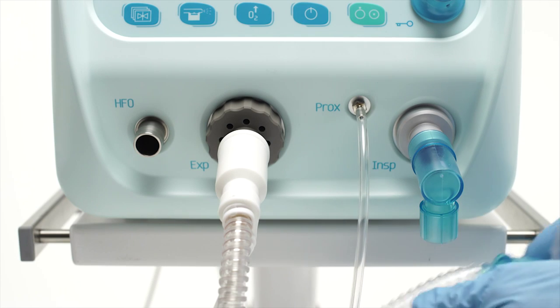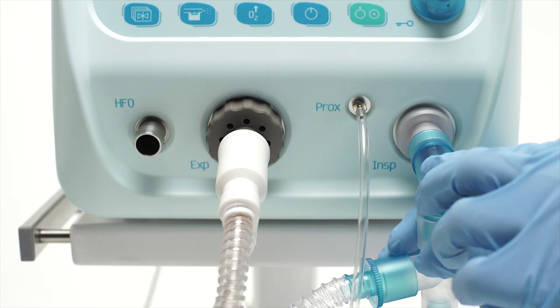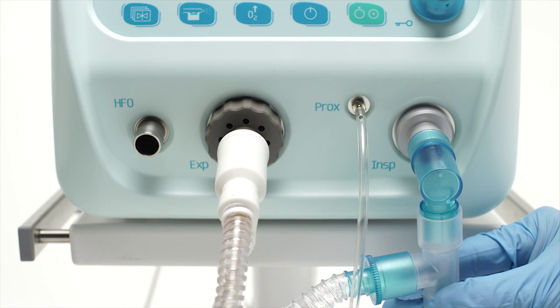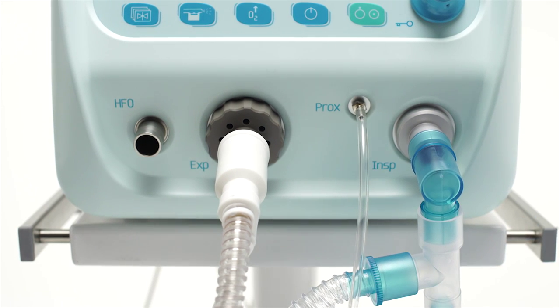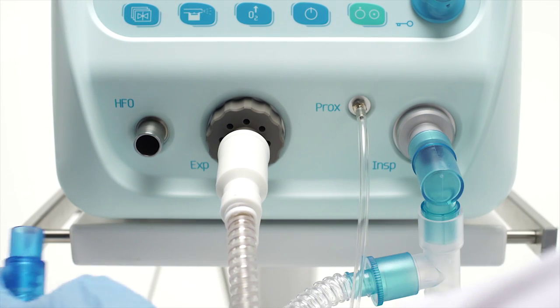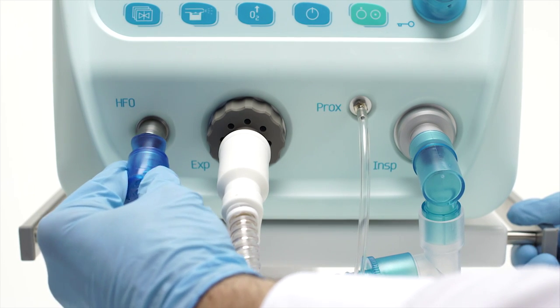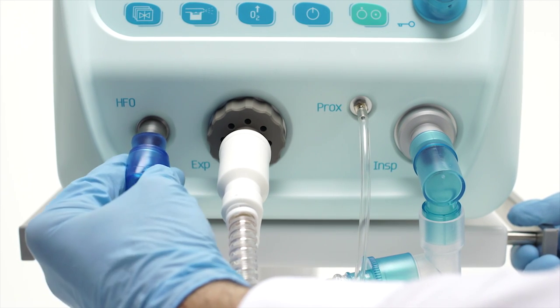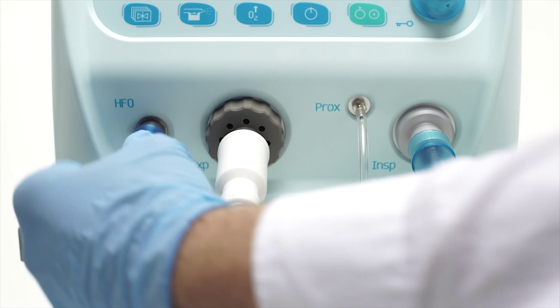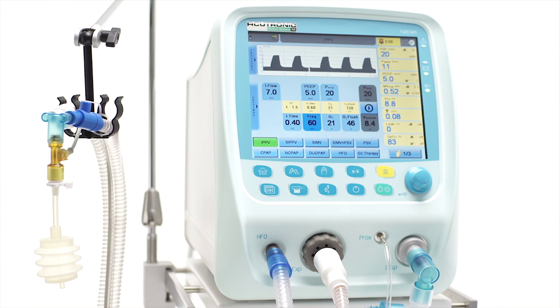To use the HFO Ventilation Mode, the HFO Interface Adapter must be in place, connecting the inspiratory port to the HFO port. The HFO T-piece can remain in place for conventional ventilation as well. There is no impact on ventilator performance or functionality.